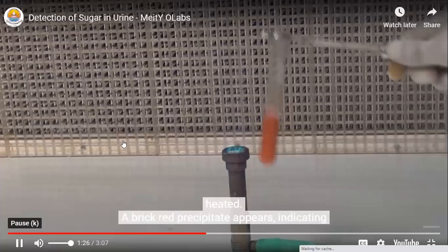So we are doing the Benedict test. A 2 ml urine sample is there, Benedict's reagent is there, flame is there. First we will add the Benedict's reagent. Okay, we have added. So now we will put this on the flame.